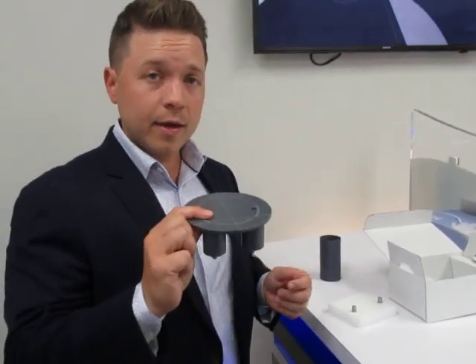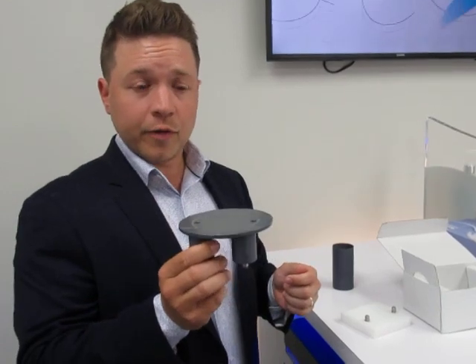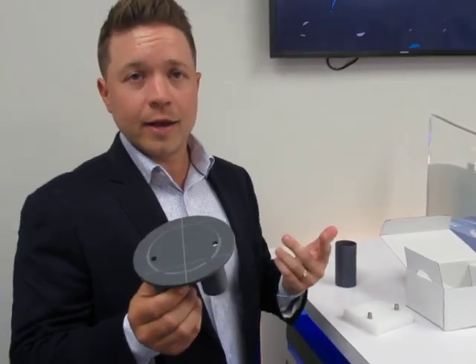This right here is your scan plate. This is going to be used for surgical guides, models, and anything else you're scanning in to create an STL file.